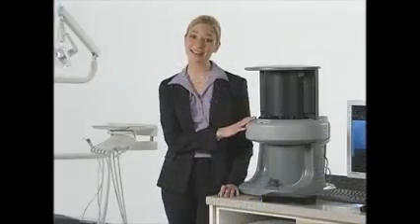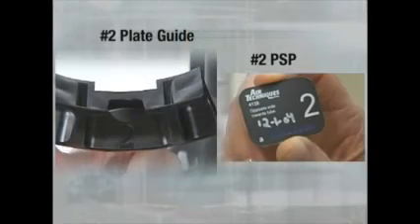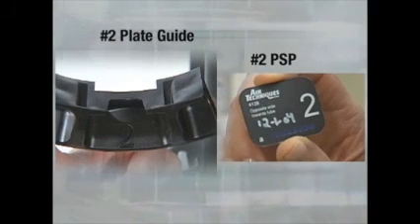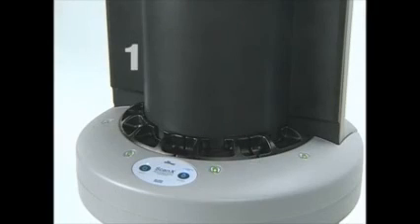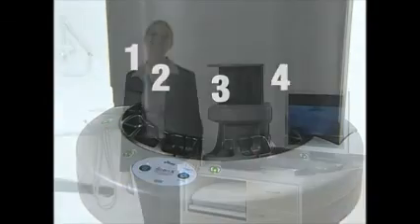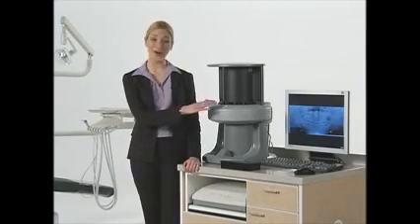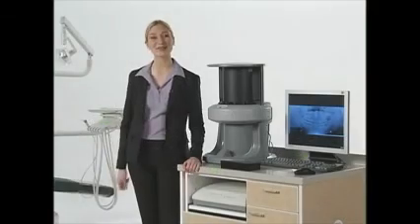Your ScanX comes with several different plate guides for various size plates. Make sure the guide matches the plates you are using before inserting the plates in the scanner. The guides lift in and out very easily. It's important to have one guide in each of the four spaces, since they hold the others in place. Any combination of guides is fine. When the ScanX is activated, the four LEDs will illuminate green.